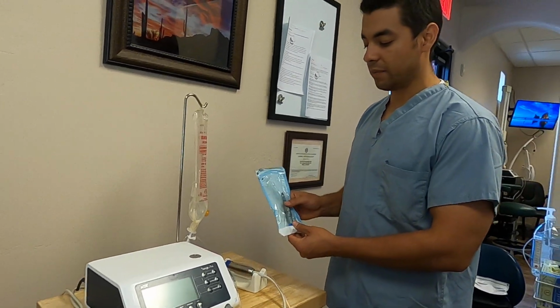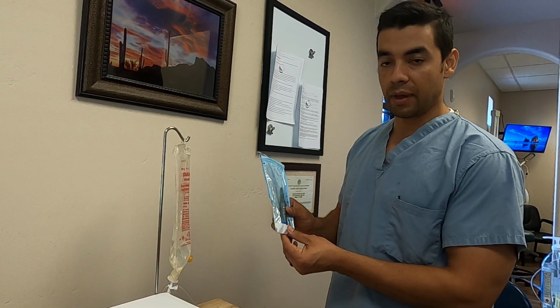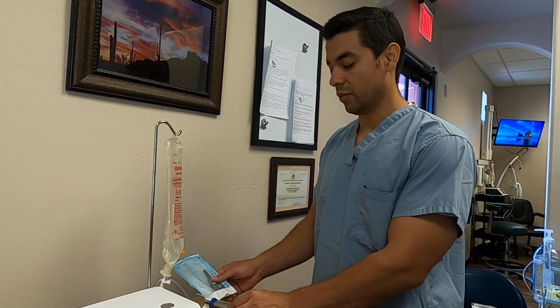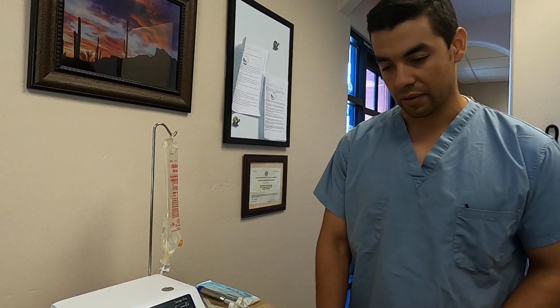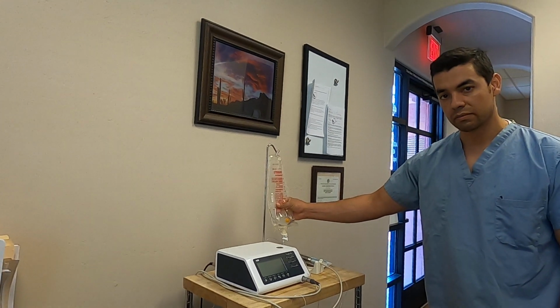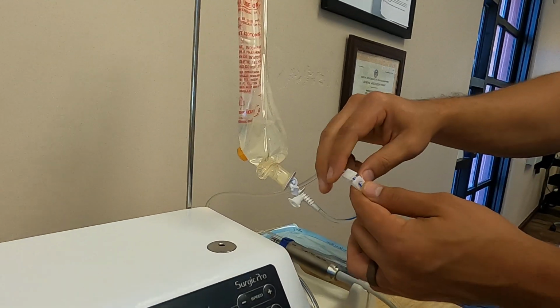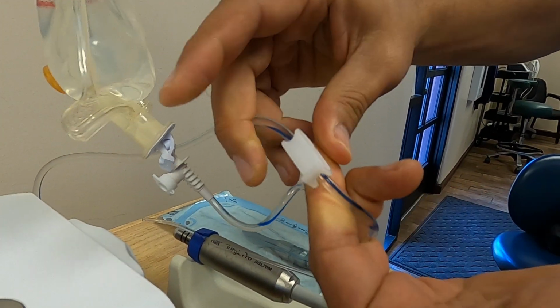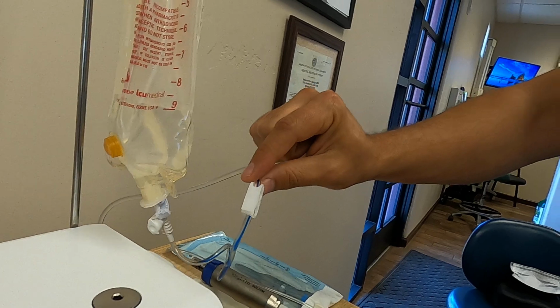That means we have the handpiece, and we can take the handpiece out of the sterilization pouch, connect it, and then cover it with the pouch again so that it remains clean. That can be set aside. And one thing that often gets missed is to make sure, one, that we have irrigation and that the irrigation is unclipped and ready to go. So this clip right here often gets clipped after a procedure. We want to make sure that that is unclipped and ready to go before the procedure goes.